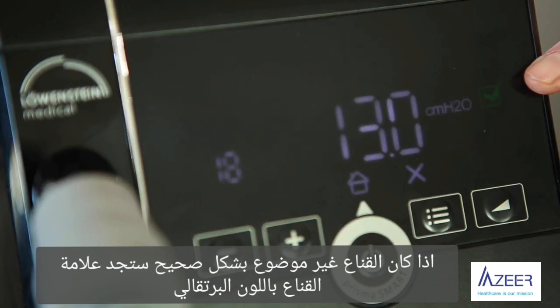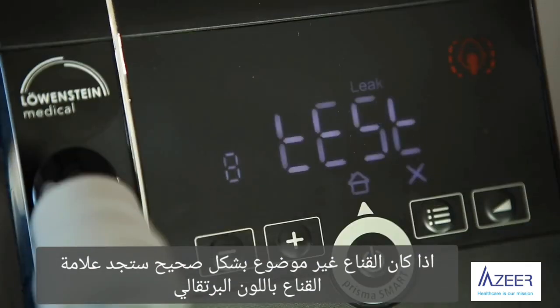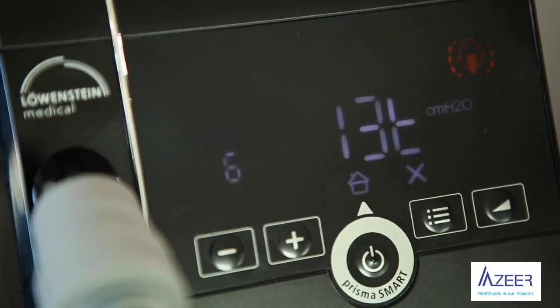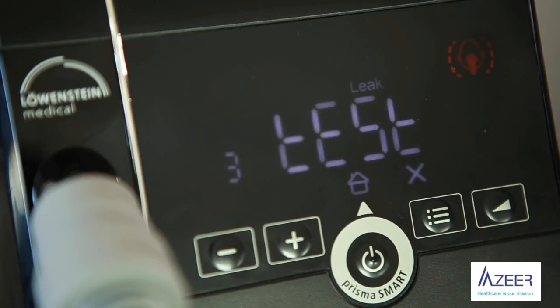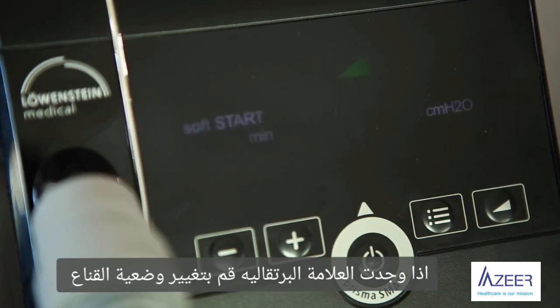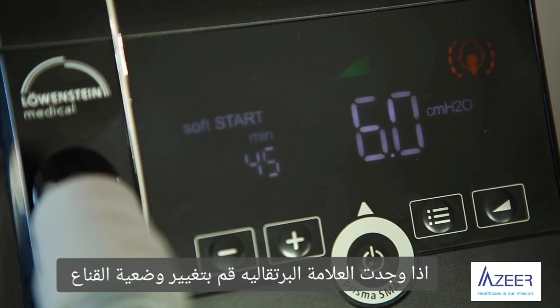If the mask position is not correct, the leak indicator is orange. If the leak indicator is orange, you have to reposition your mask.